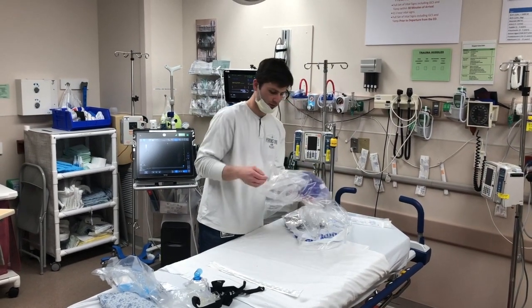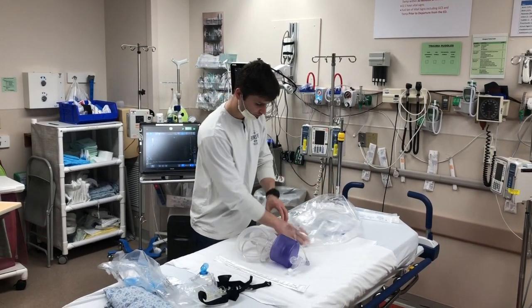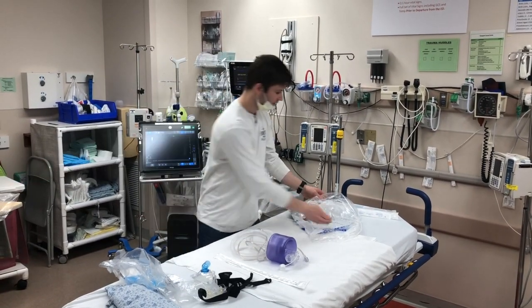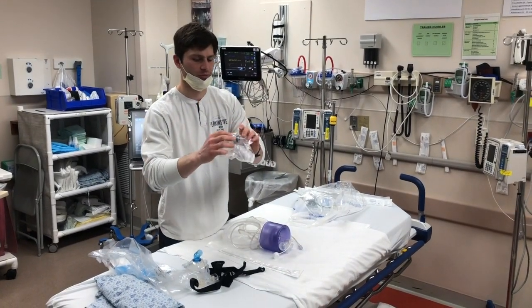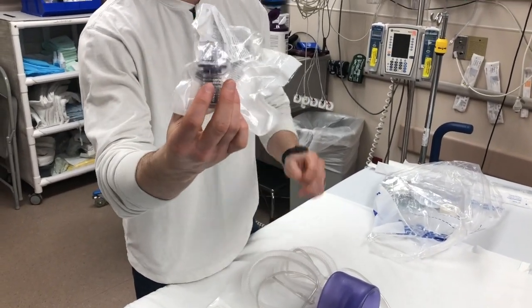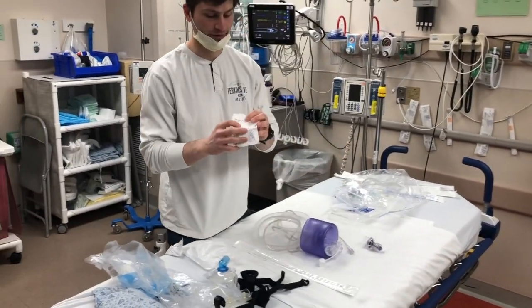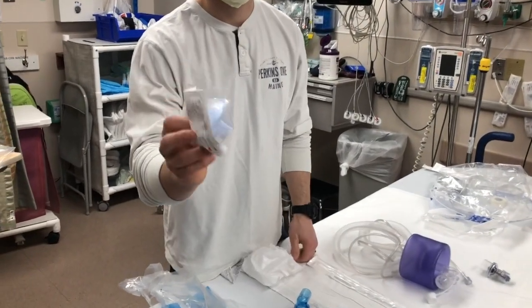So you have your stylet. You have your BVM. You actually do not need the BVM mask for this because the BiPAP mask is going to be the fitting that fits. You have a peep valve — this is what a peep valve looks like if you haven't seen one before. You have a viral filter. A lot of us, myself included until now, are not aware what the viral filters look like. They look like this — a little bit different than the EMCrit podcast video; these were yellow in Scott Weingart's video, but they look like this for us.